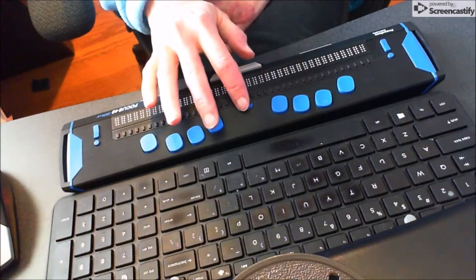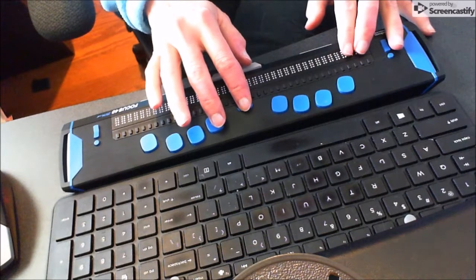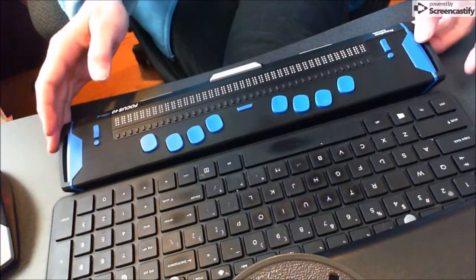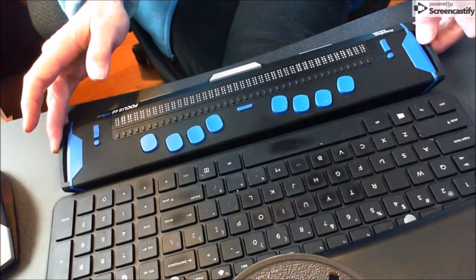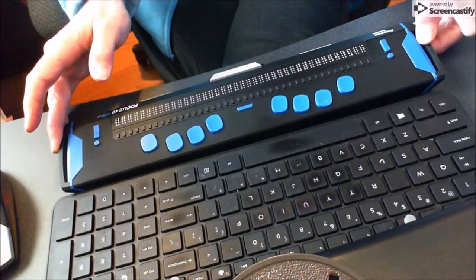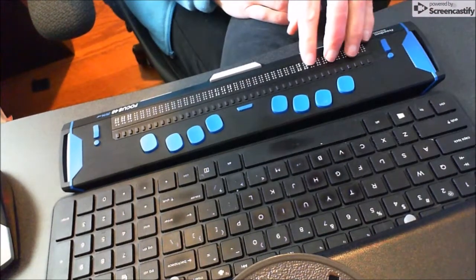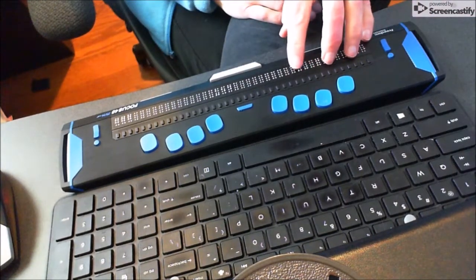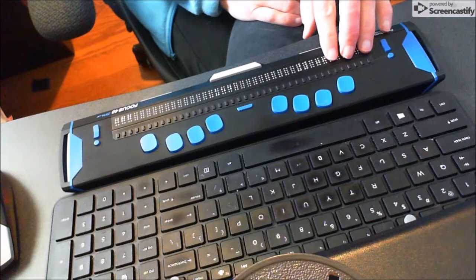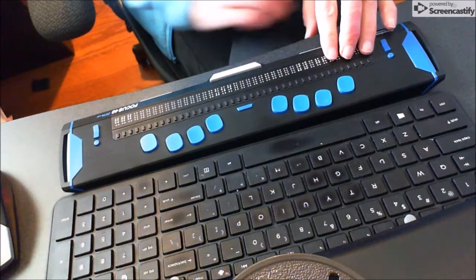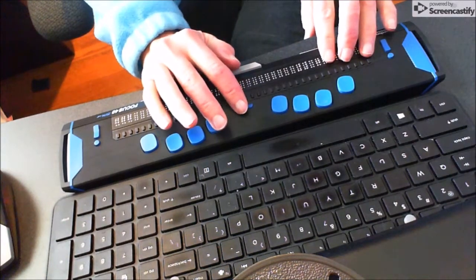You need to do this when you're in your status menu. That means turn it on, make sure your JAWS is not on, because you want just the clock to be showing. It's flashing away, and the clock option is also in this menu.